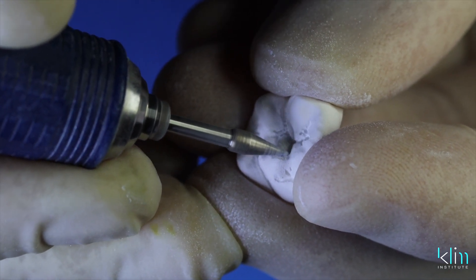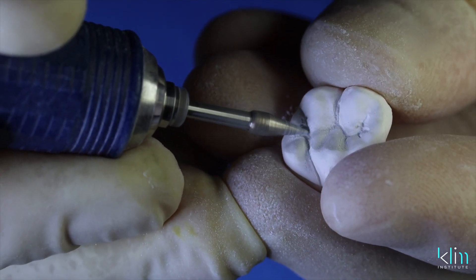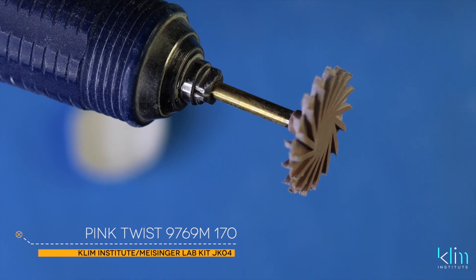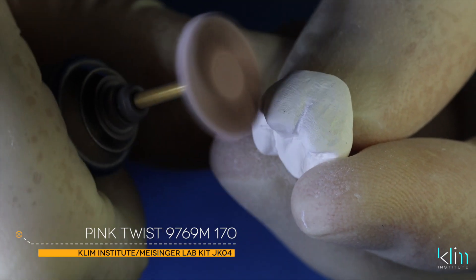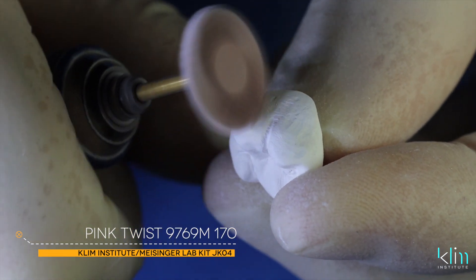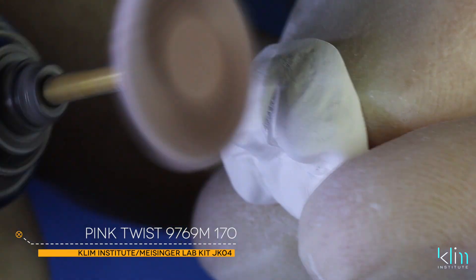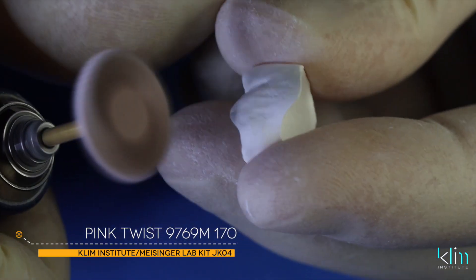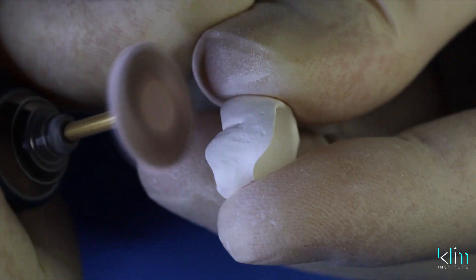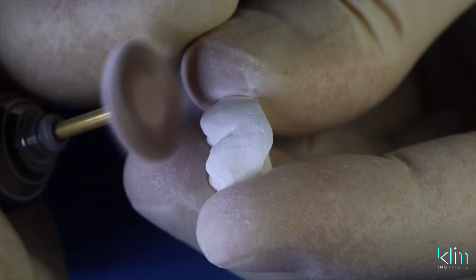These two diamond burrs are my favorite for creating what I call micro surface texture and groove refinement. Creating the final luster starts before you sinter. This is the pink twist on the JK04 zirconia finishing lab kit — it polishes well in the green state, which is the chalk state. What we're wanting to do here is soften the texture. That's a basic concept in texturing: texture and then neutralize.